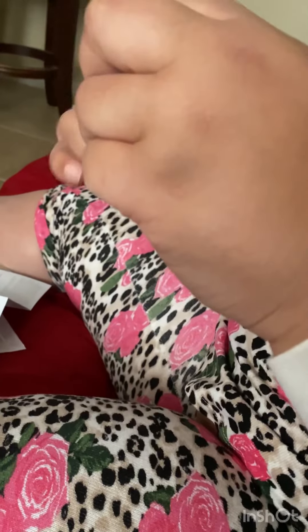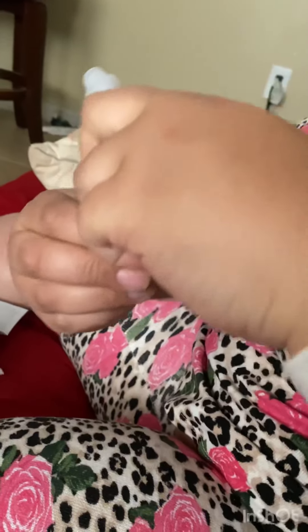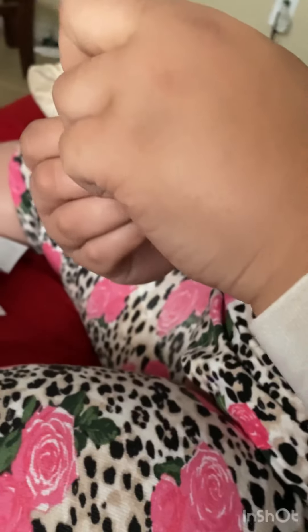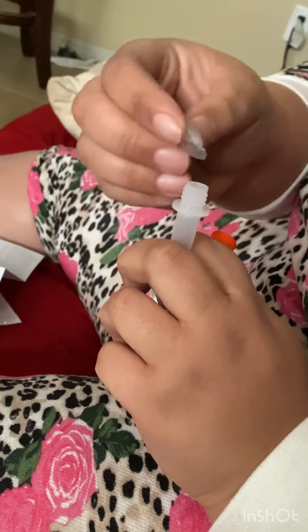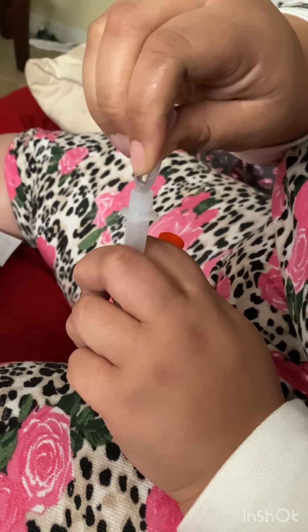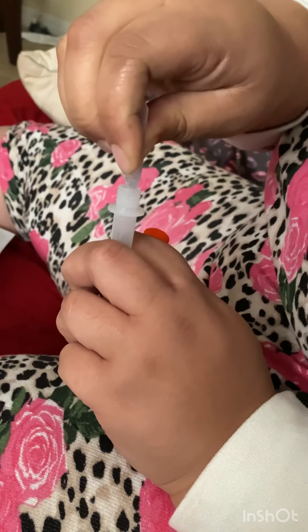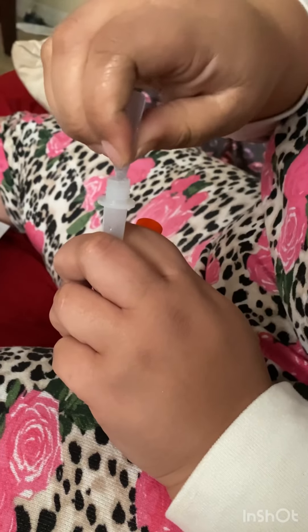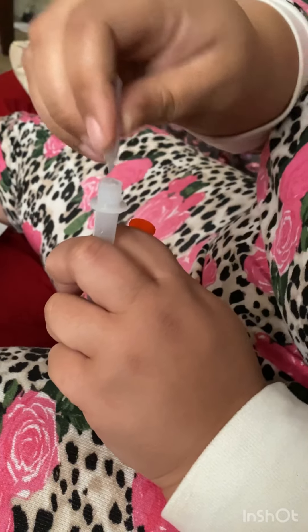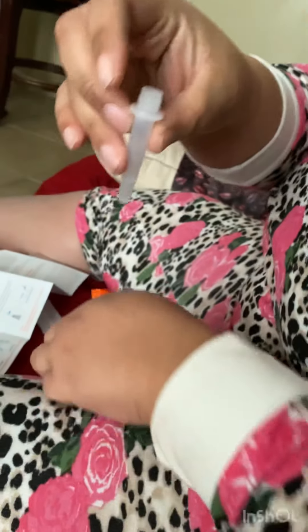Oh, they got bubbles! Please don't say positive — I just had COVID. Oh god, don't say positive. Can't be at school for another 10 days. My face — it is that one.